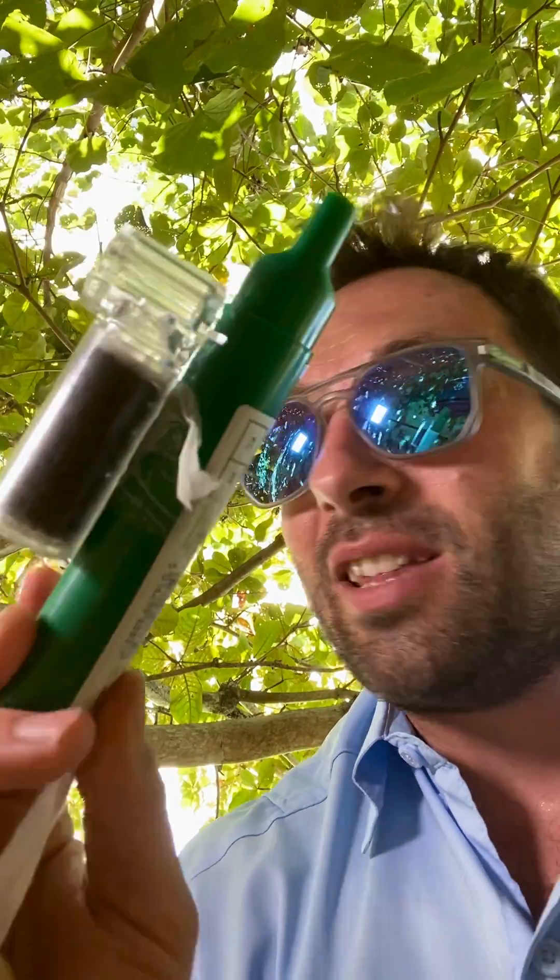You can see how quick and easy that is to set up in an emergency. In a trauma you could have that stashed in the outside of your response bag, on your belt, in your pocket — ready to go within seconds. Definitely earned its place in my wilderness medical kit.